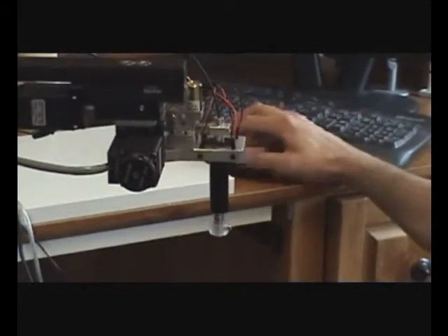Thank you very much. Our system is now ready to be used in the clinic for detecting various skin disorders, including skin cancer. And that concludes our presentation. Thank you.